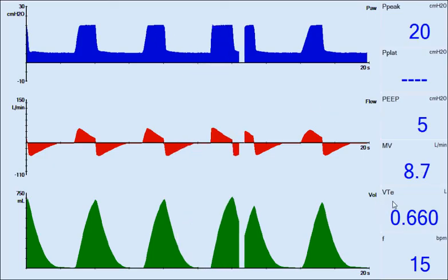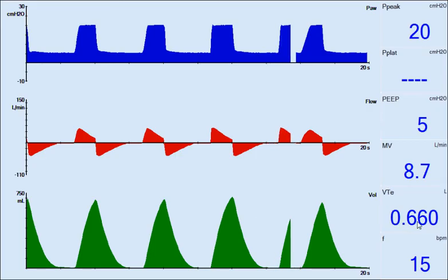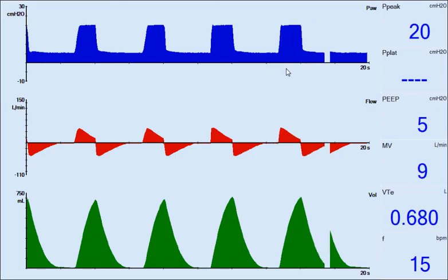You notice right now my pressure hasn't changed and I'm getting an increase in tidal volume just by increasing my rise time.